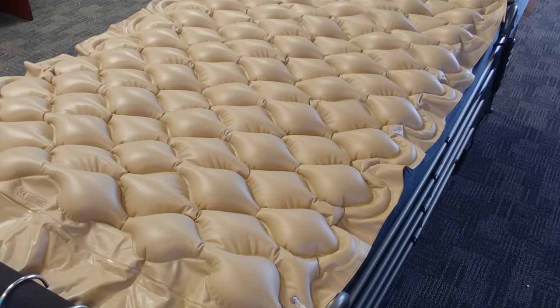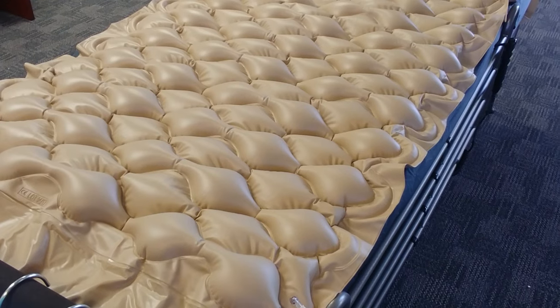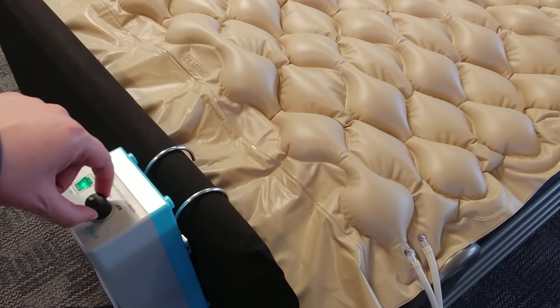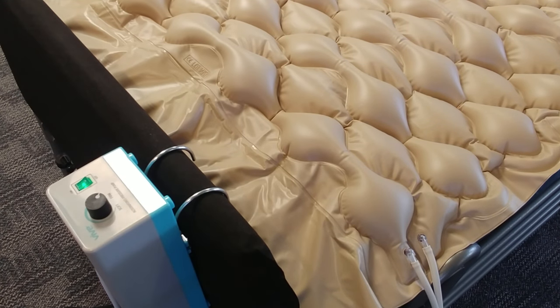Once it's set up and fitted on the bed, it should fit any standard length and width hospital bed mattress. You're really good to go. All you'll need to do is adjust the pressure from soft to firm based purely on the user's comfort level, and you're all set.